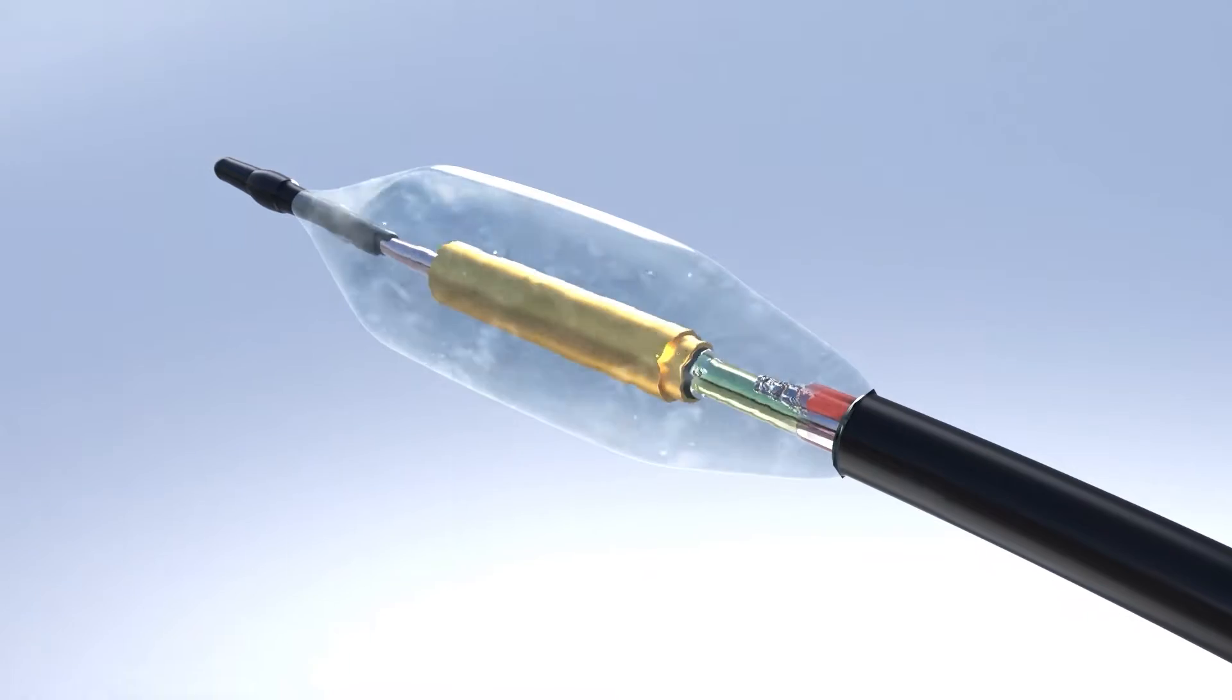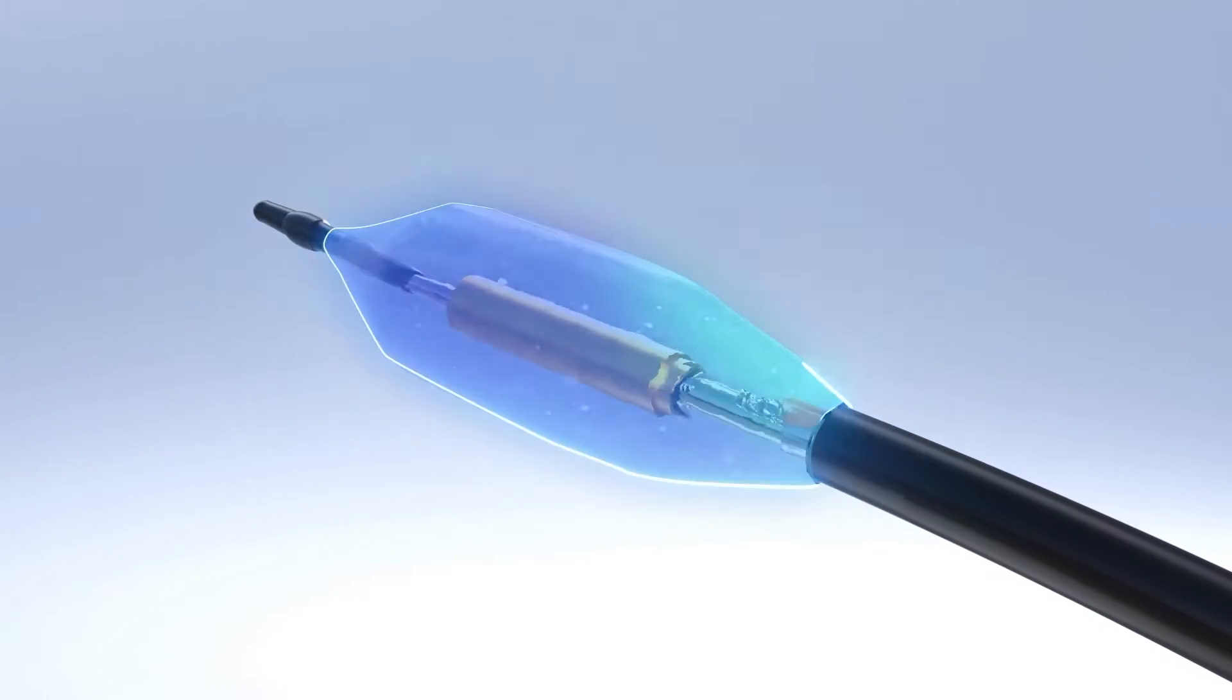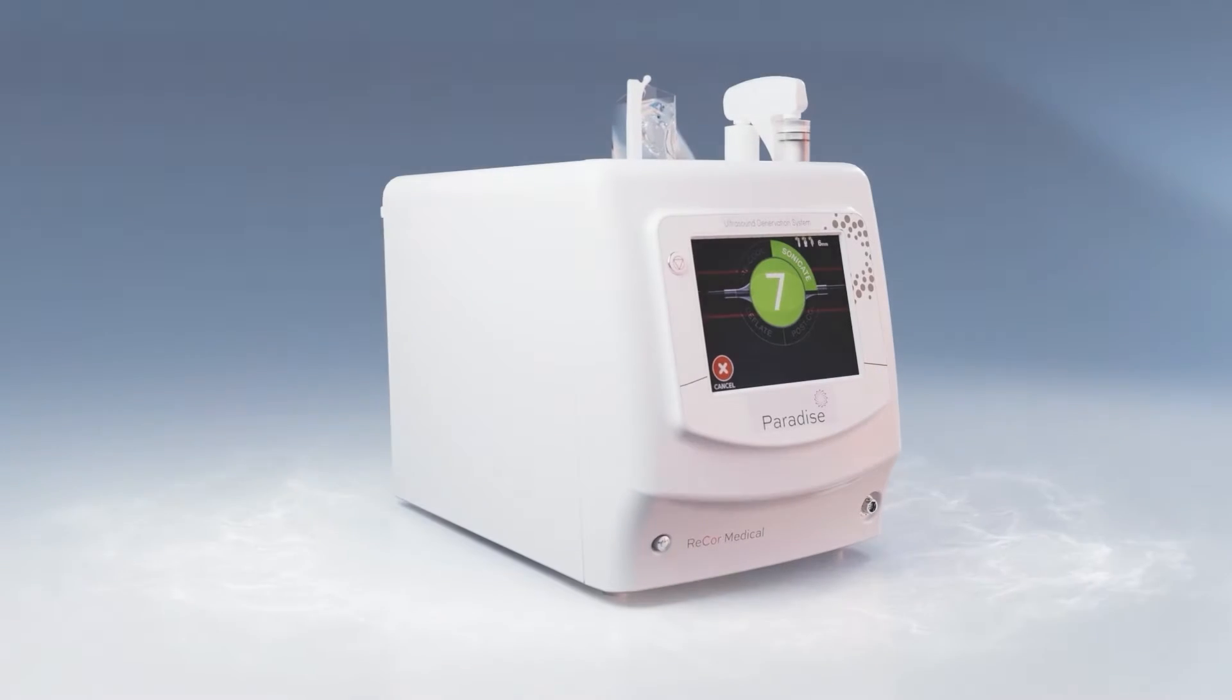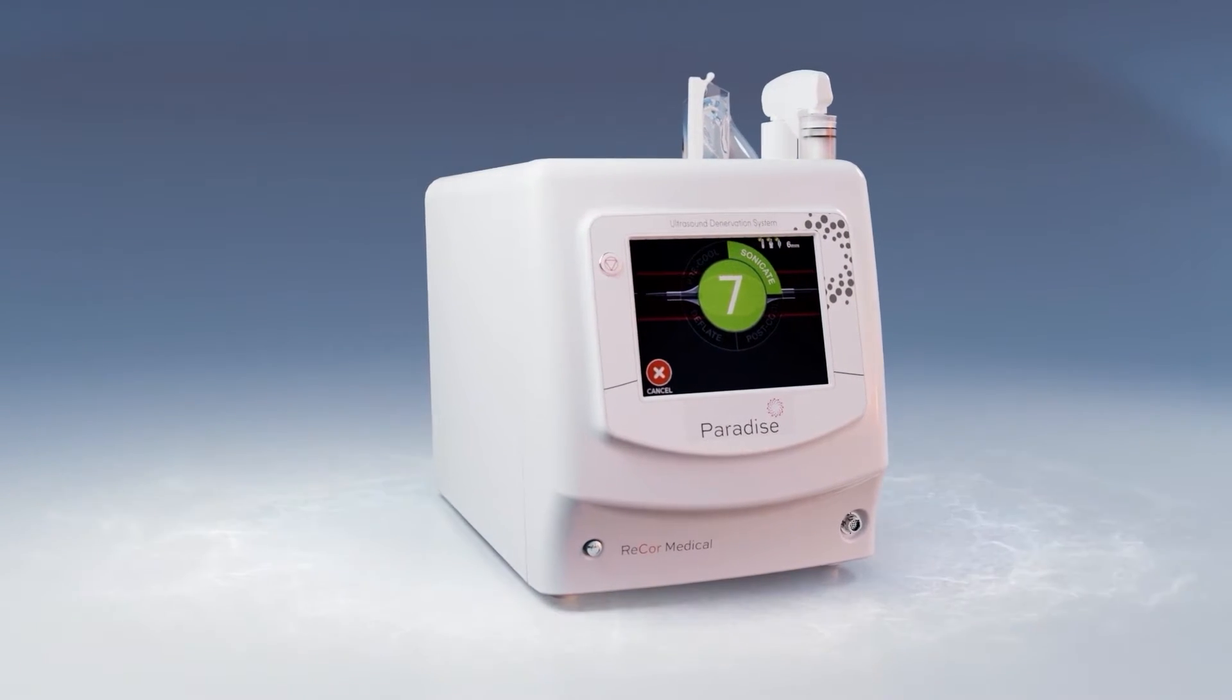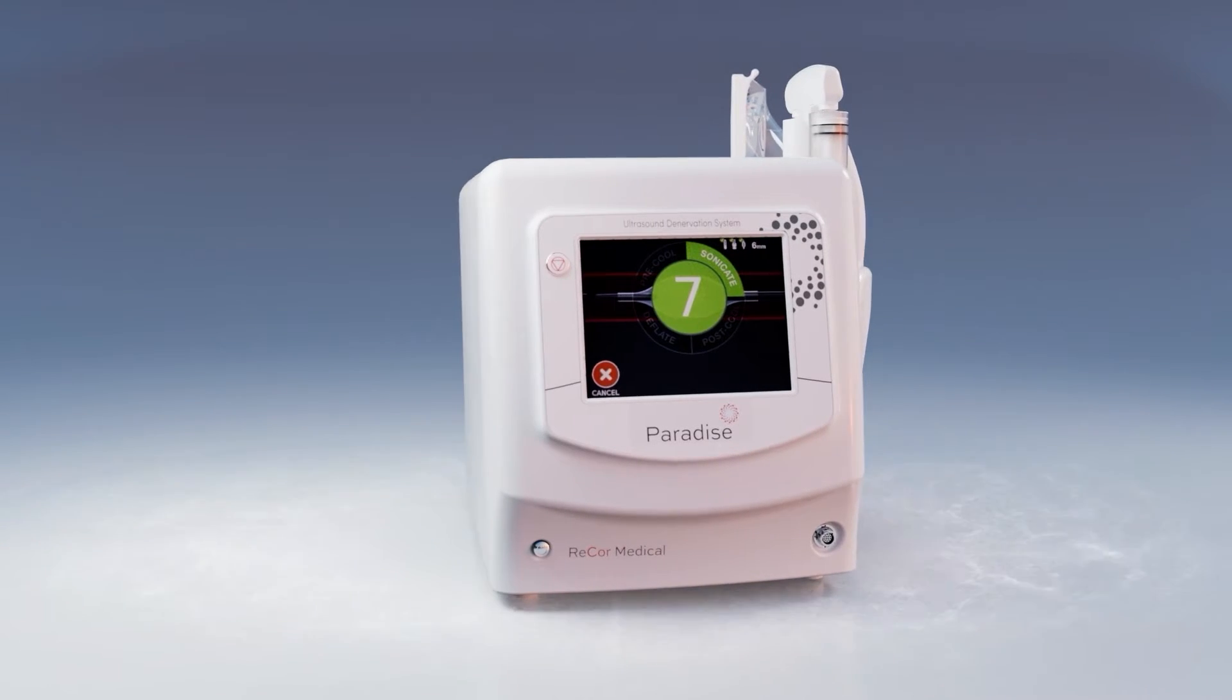The patented hydro cooling system circulates sterile water during the procedure to help protect the renal arteries. The Paradise Generator carefully manages energy delivery and safely customizes it for each patient's unique anatomy.